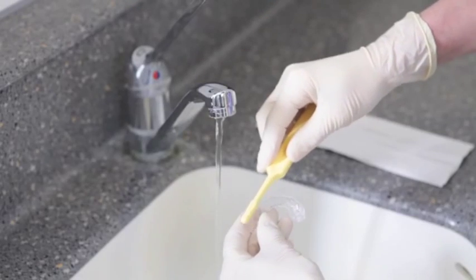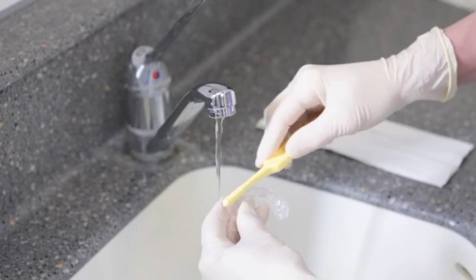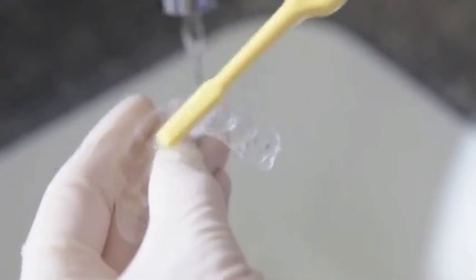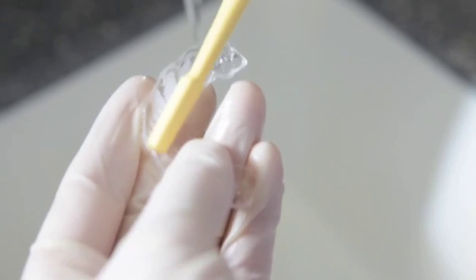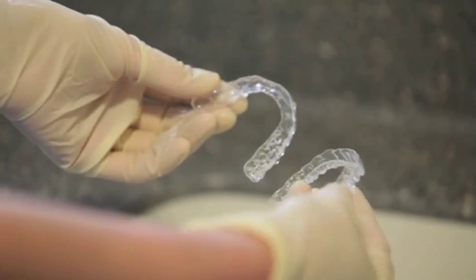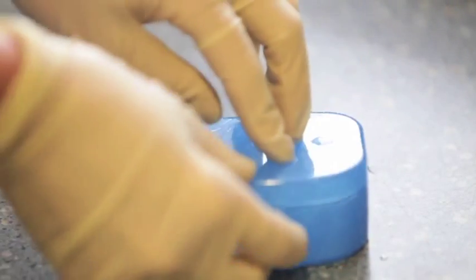It's very important to keep your retainers clean if they're not going to get smelly or unattractively dirty. Hold the toothbrush and rotate it in tiny circles going into the bit of the retainer that fits around your teeth. Rotate the retainer round making sure you clean all of it. Rinse the retainer under the running tap and put it away in your retainer box until the evening.